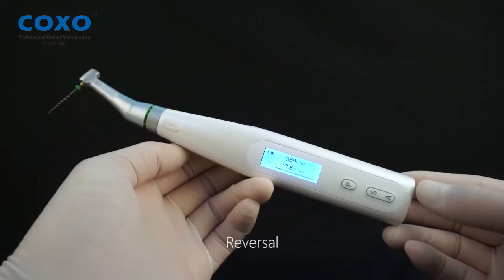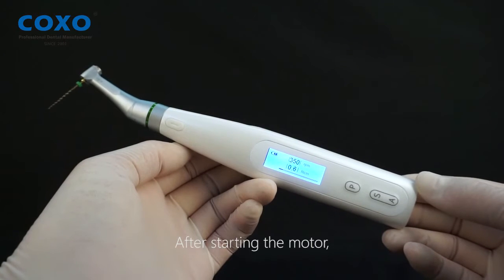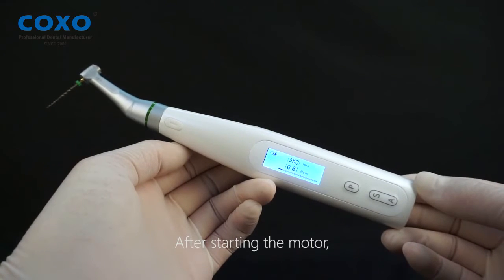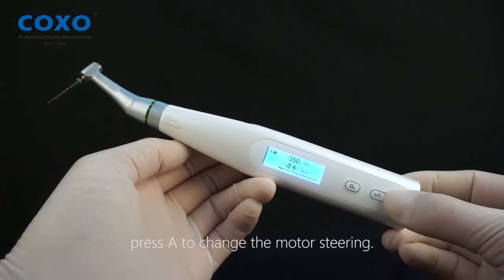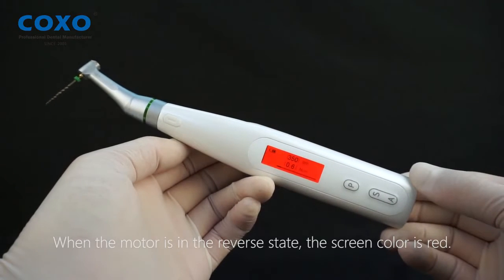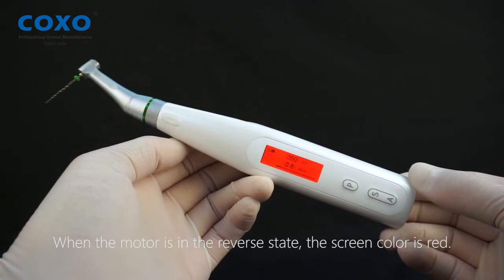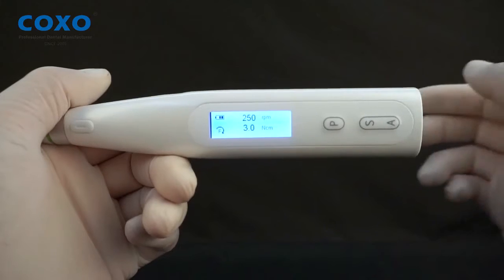Reversal. After starting the motor, press A to change the motor direction. When the motor is in the reverse state, the screen color turns red.